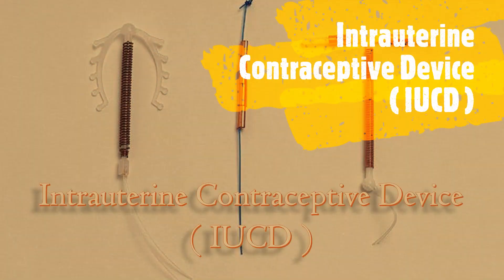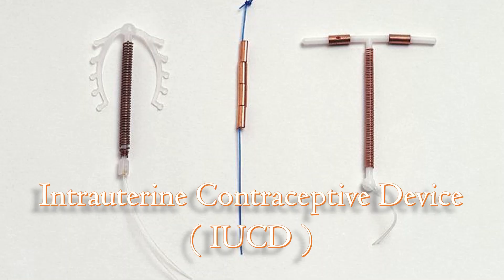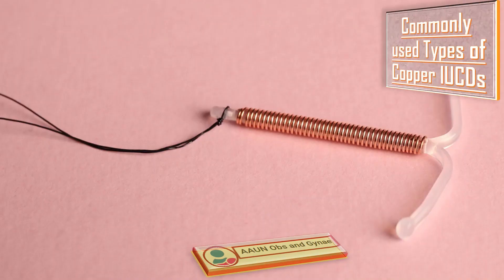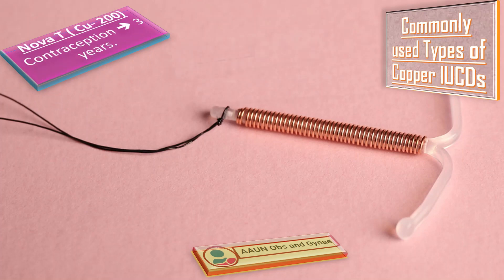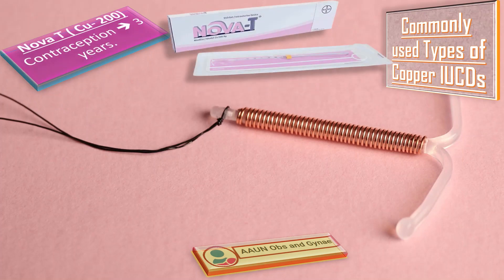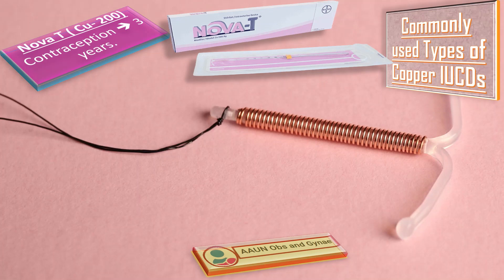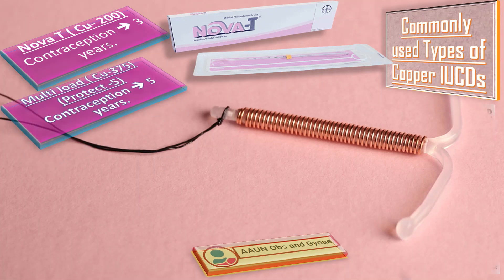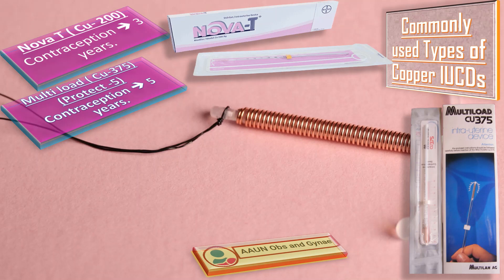The topic of our discussion today is intrauterine contraceptive device (IUCD). We will study the commonly used types of copper IUCDs, which include: first, Nova-T Cu200, which provides contraception for up to three years — Cu200 means it has 200 square millimeters of copper wire wound on its stem. Next is the Multi-load Cu375, with the brand name Protect 5 by Green Star, providing contraception for up to five years.